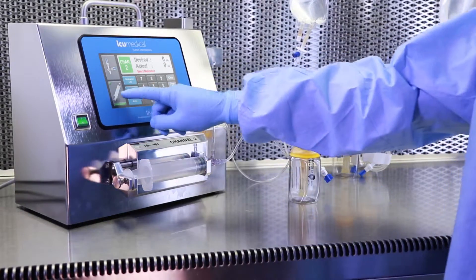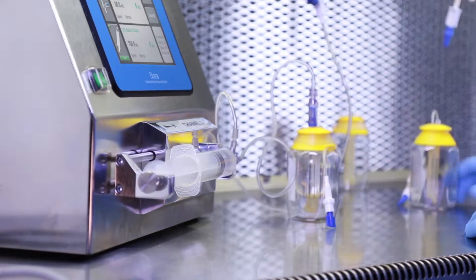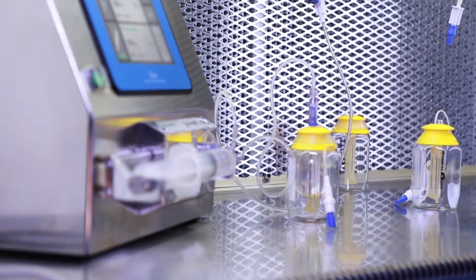Then confirm the fluid type and volume, press start and Diana does the rest, effortlessly filling the pump while giving the technician time to multitask.